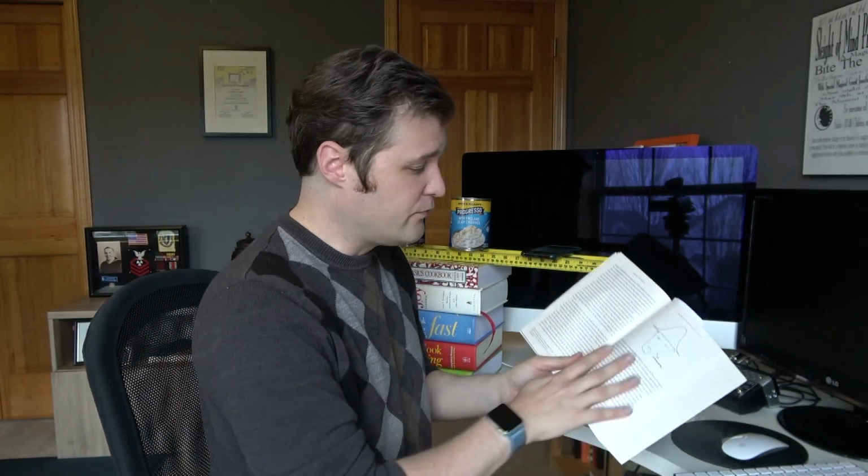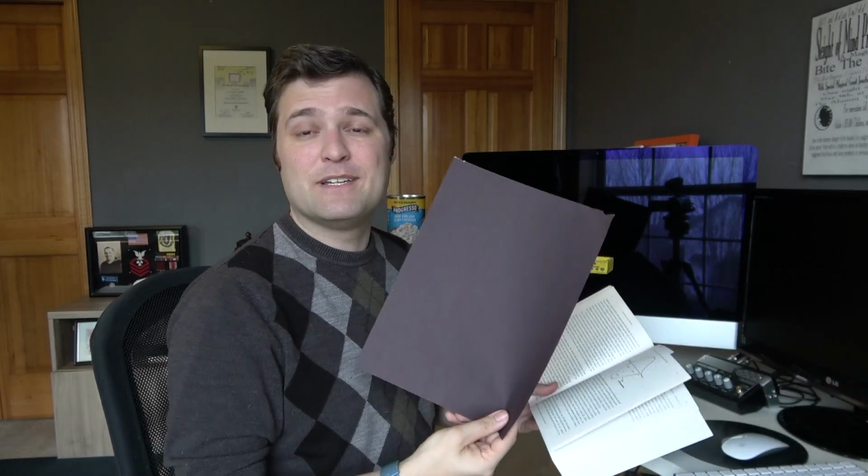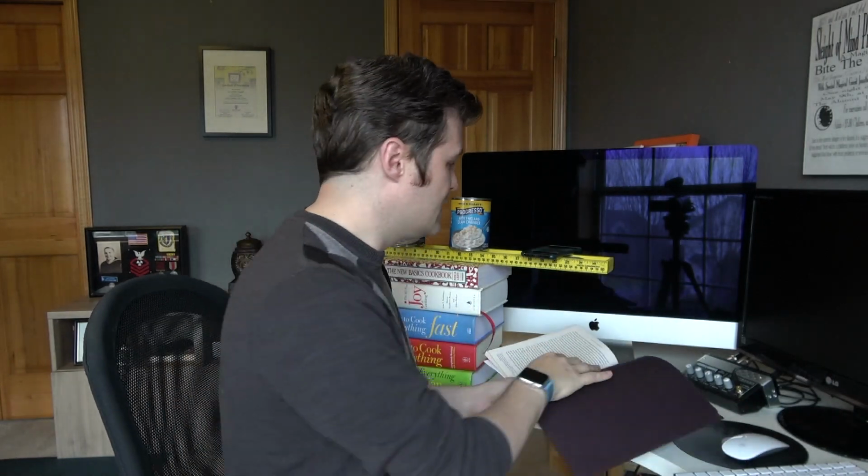Now, I've got a nice fold here. I've got a lot of text here. To make it a little bit easier, because I don't want to get too much at once, I'm actually going to use a piece of construction paper to cover up one of the pages of the book. That way I'm just doing one page at a time. I find that this works the best here. So what I'm going to do is cover this up, place this underneath the best I can. When Seeing AI sees all four corners of this white page here, it's going to take a picture and give me the results. So let's go ahead and give that a try.